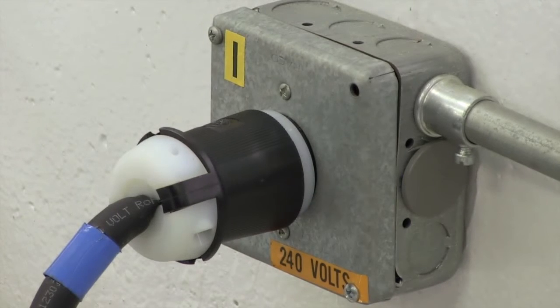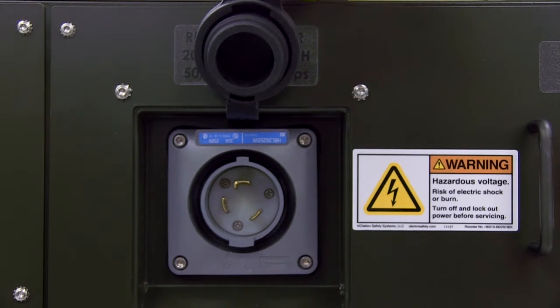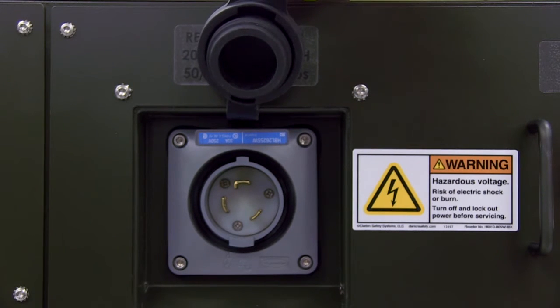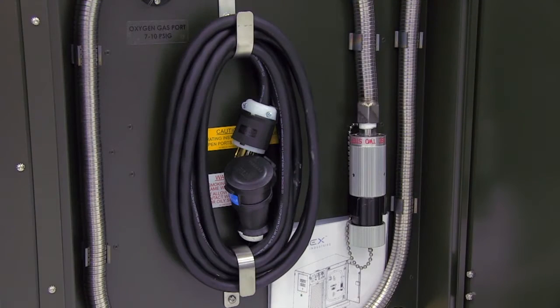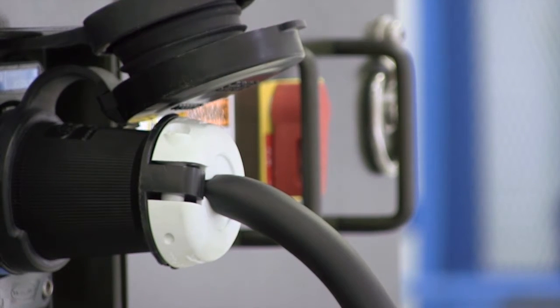The OGL is designed to operate on 240 volt AC, 60 hertz, single phase power with a minimum 30 amp circuit. The system has a commercial NEMA L6-30 for the main power connection and comes standard with a 20-foot NEMA L14-30P power cord. Contact Essex if a different power cord configuration is needed.